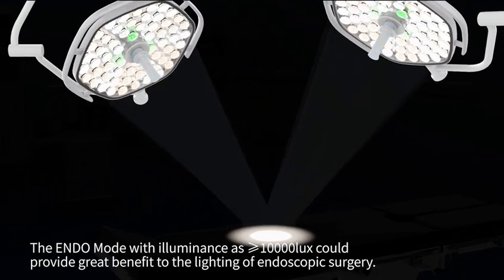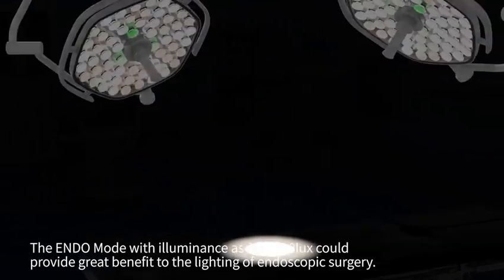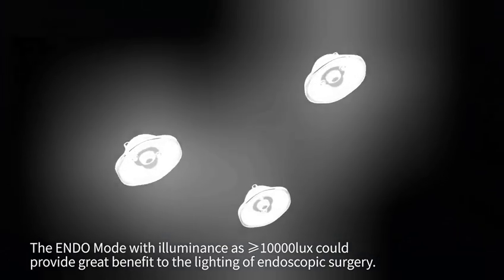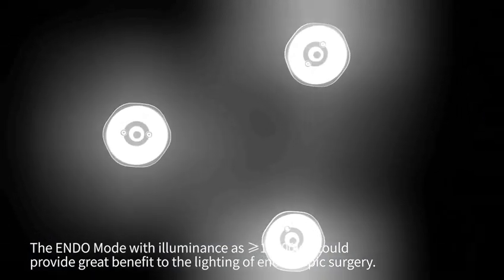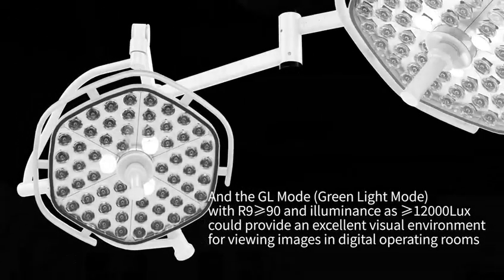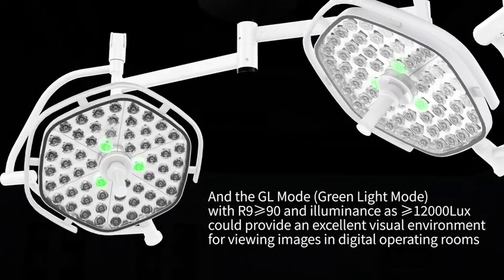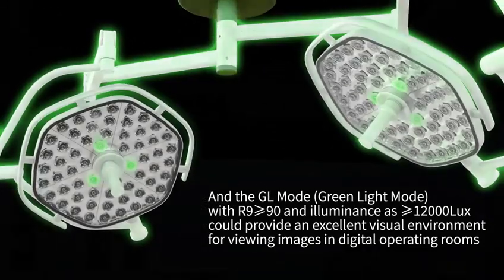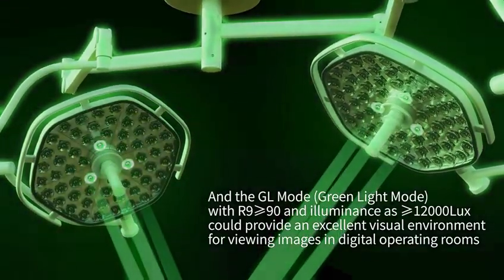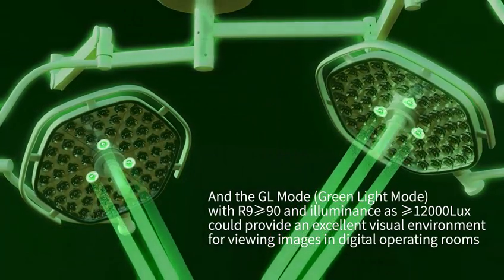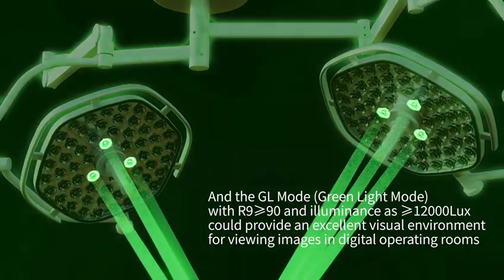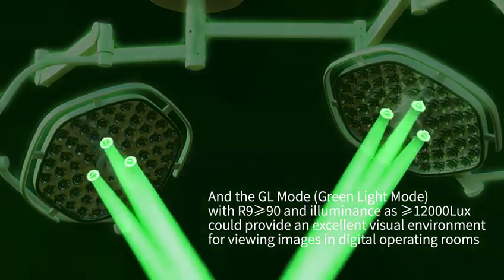The ENDO mode with illuminance greater than or equal to 10,000 lux provides great benefit to the lighting of endoscopic surgery. The GL mode with green light, R9 greater than or equal to 90, and illuminance greater than or equal to 12,000 lux provides an excellent visual environment for viewing images in digital operating rooms.